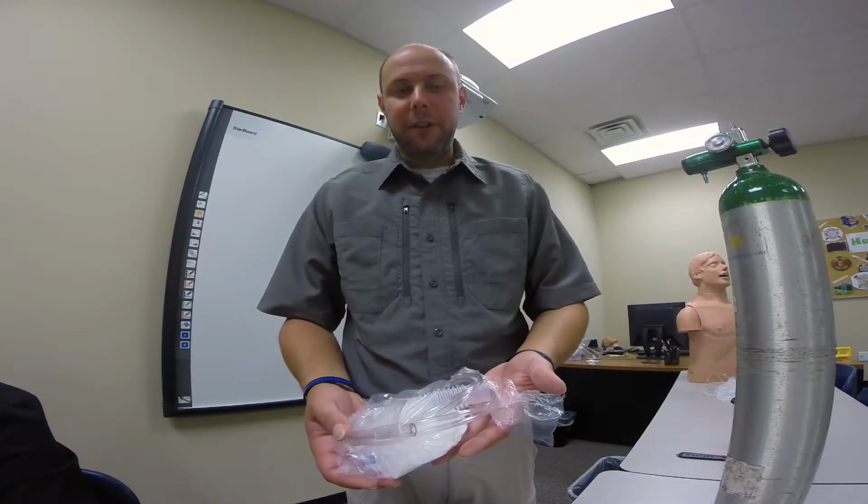Alright, in this video we're going to be discussing assembling and the administration of a nebulizer. So the nebulizer comes packaged with everything you need to get started.